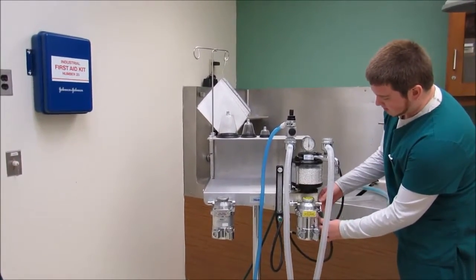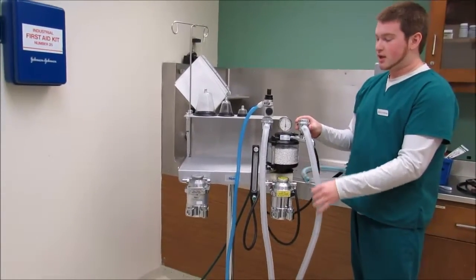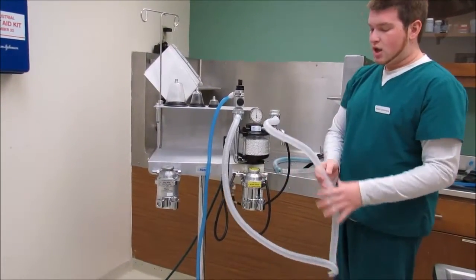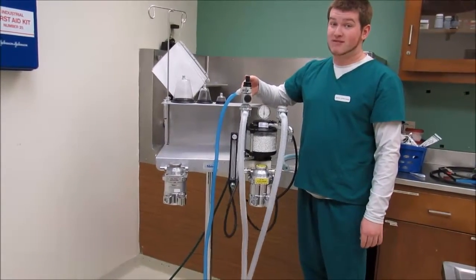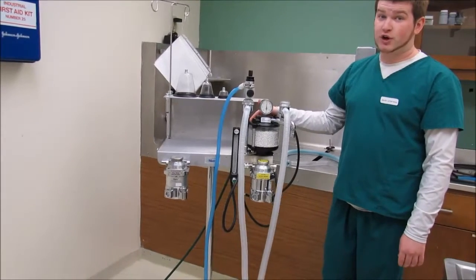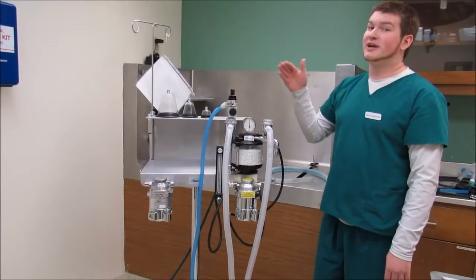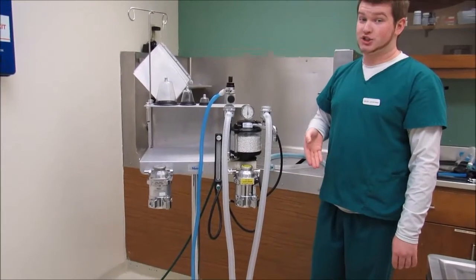the patient through the unidirectional inspiratory valve, where they breathe in oxygen and sevoflurane in this case, through the patient, back to the unidirectional expiratory valve, where it then runs to the CO2 canister, which converts the carbon dioxide into calcium carbonate, where then the patient can rebreathe the leftover anesthetic gas and oxygen.